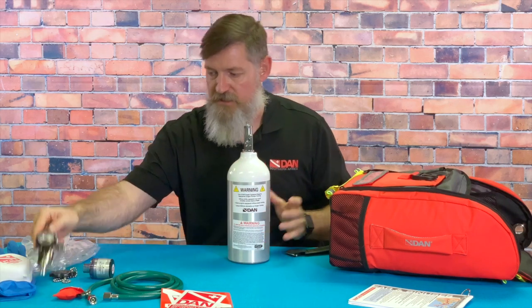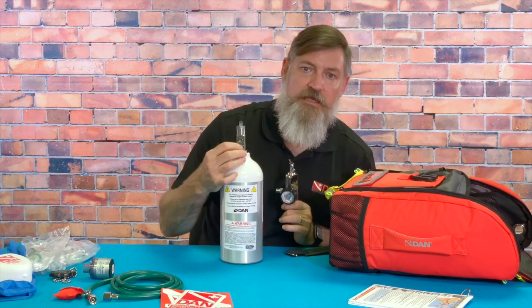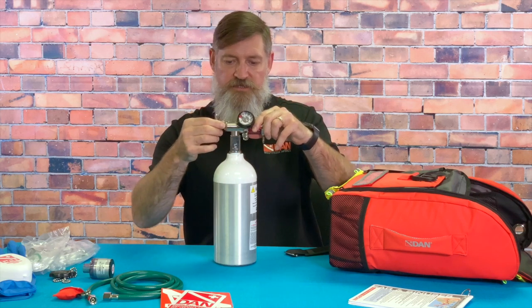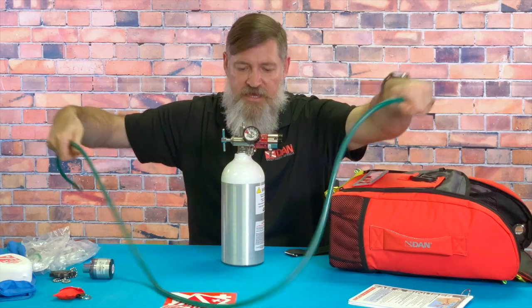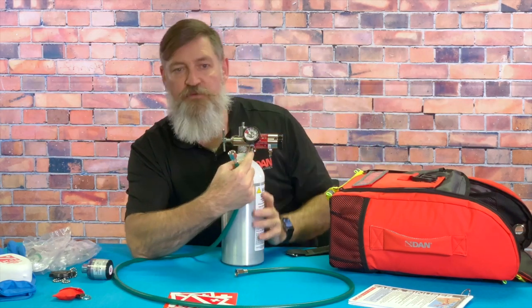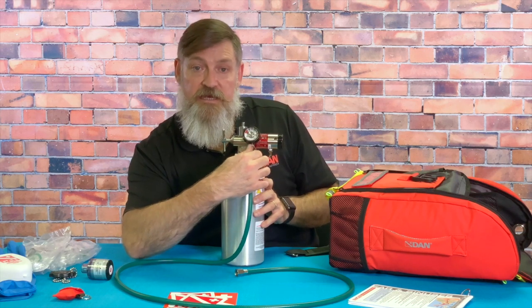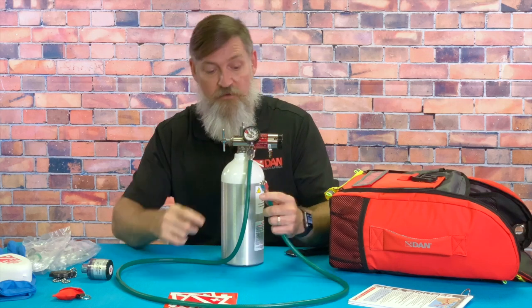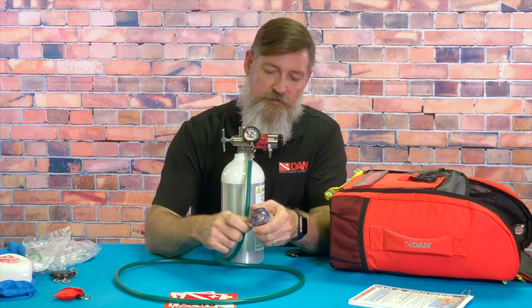I think this is a really great kit to have around poolside areas or quarries. Let me give you a quick rundown on how to assemble the unit. You've got your regulator — open the T-handle and there are two little pins and an oxygen washer inside. On the valve itself there are two little openings which the pins fit into. Slide it in nicely and it's important not to over-tighten the T-handle — just finger tight is more than enough.